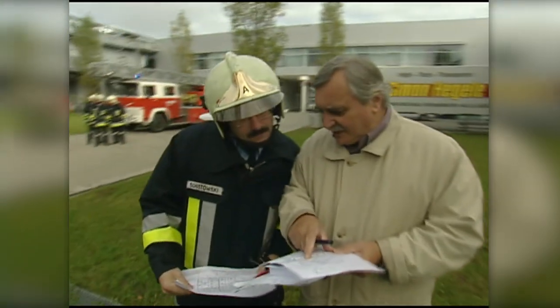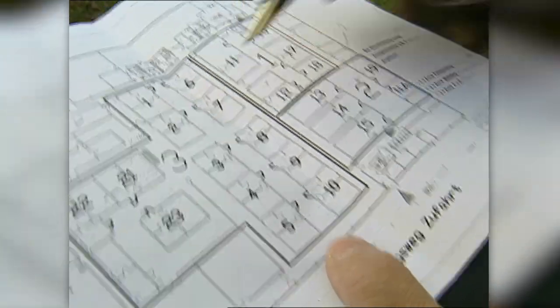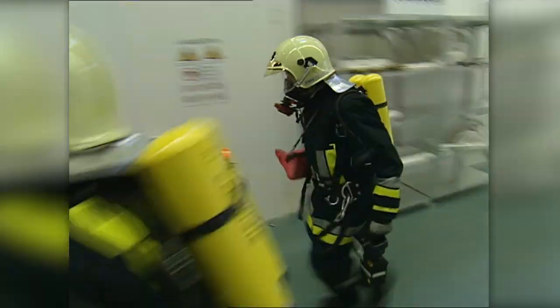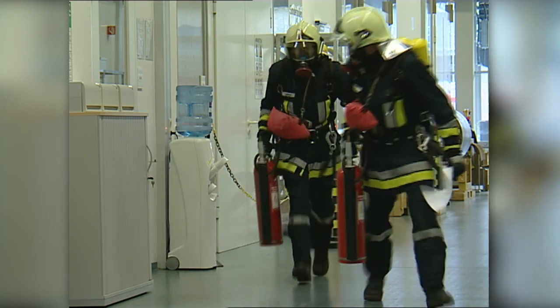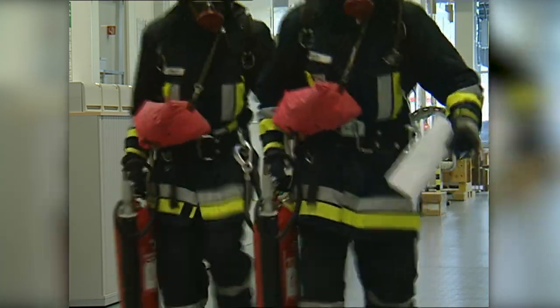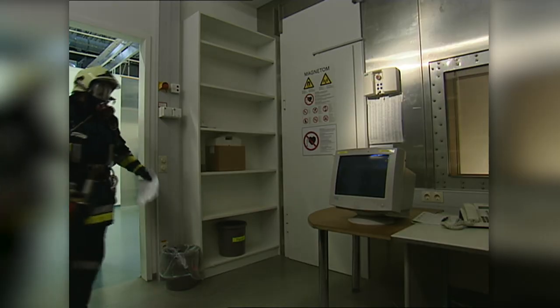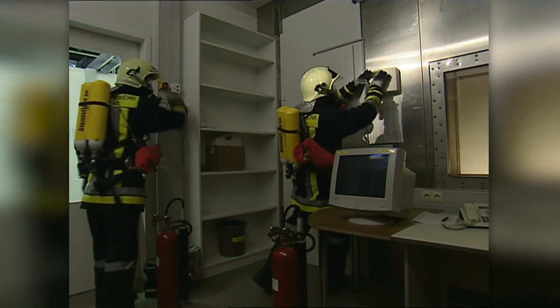It is essential that you are informed about the appearance and location of the emergency switches right from the start. Also, make sure that external personnel, such as rescue workers, are briefed as well. Be aware to use only MR-compatible equipment. The emergency shutdown switch and the magnet stop switch may also be installed at different locations on the system. Operating personnel can find sufficient information in the manual to create suitable emergency plans.